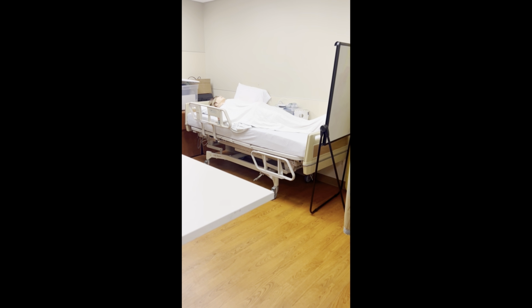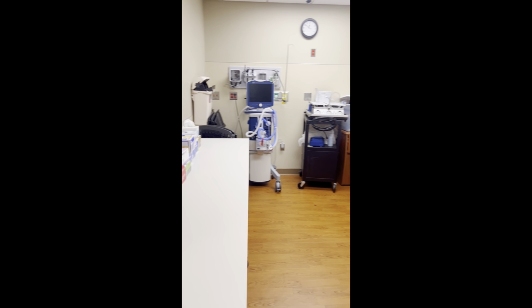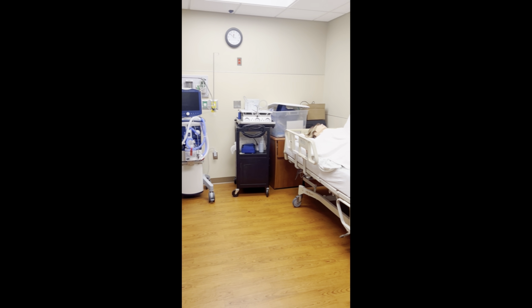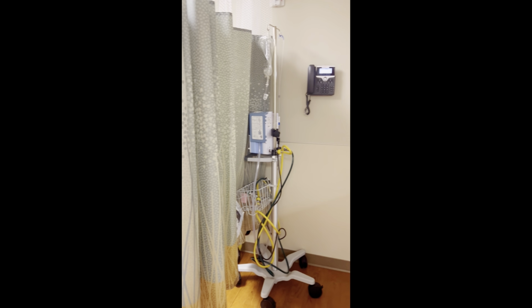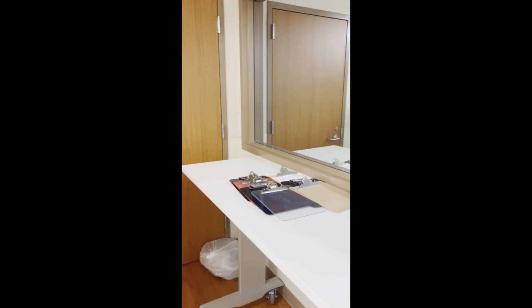Here is an example of our ED bay. This is just the third ED bay because we have two others as well. I didn't get videos of those. This one in particular is used to store SimMom, as well as some ventilation equipment as well. And there's a storage room in the back there. But our ED bays don't look like this anymore in the hospital. This is like the old school ED bays.